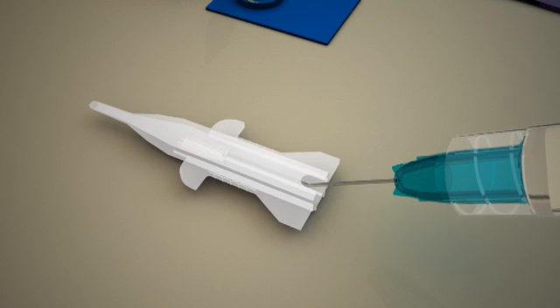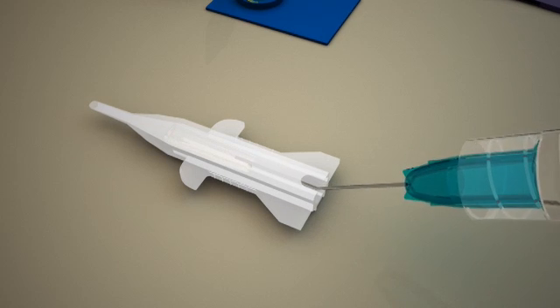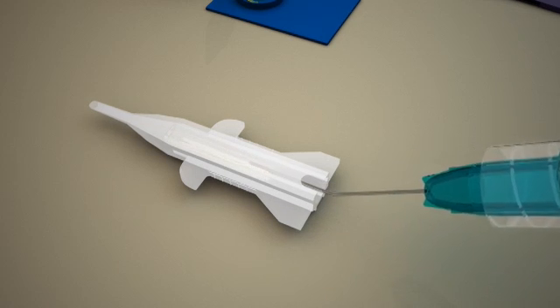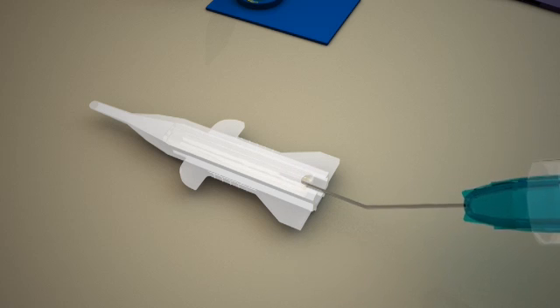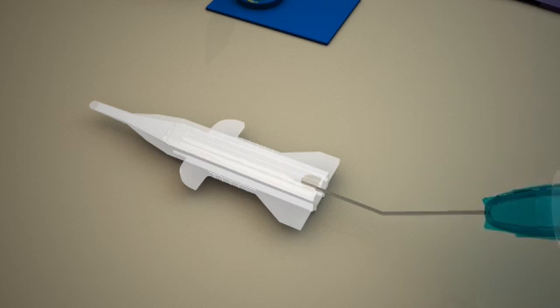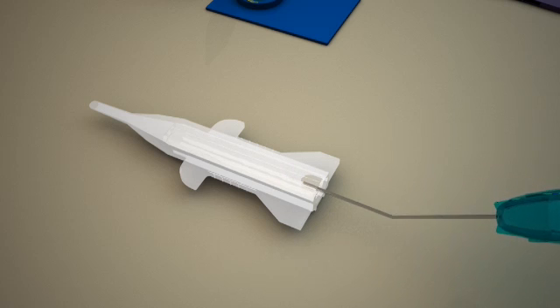Use iVisc viscoelastic solution to fill the iGlide tube cartridge and ensure that no bubbles get entrapped in the cartridge lumen.